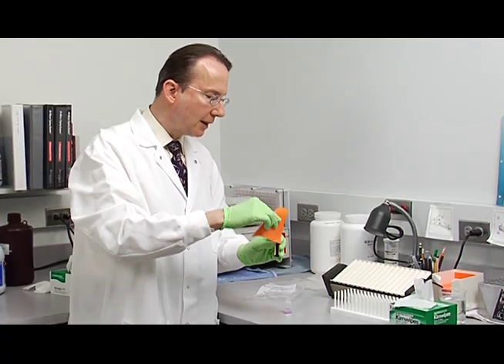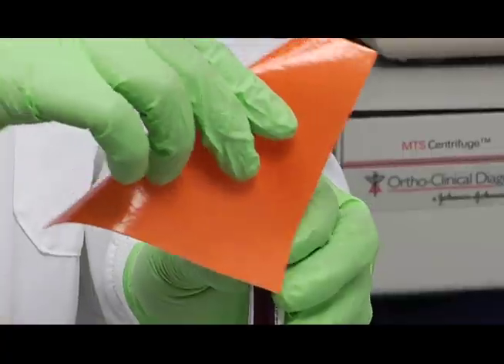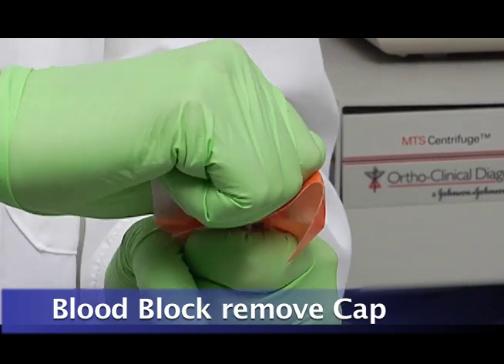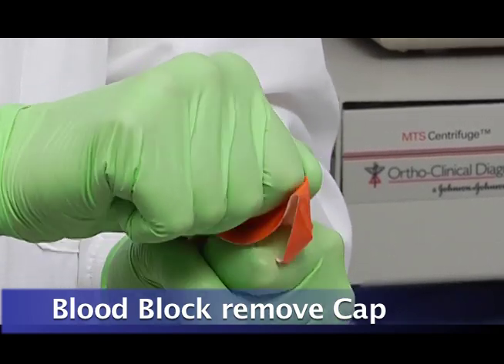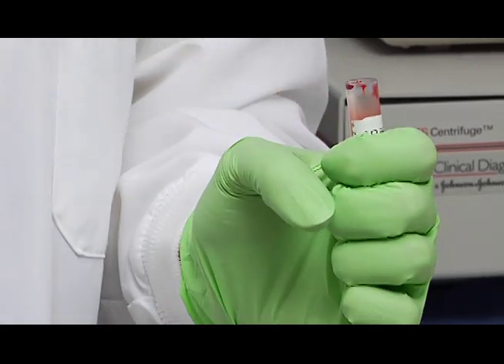With a blood block, remove the cap from the specimen. And you can lay the cap on the counter here.